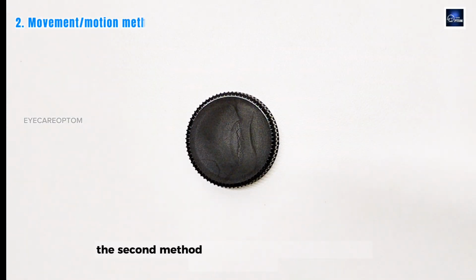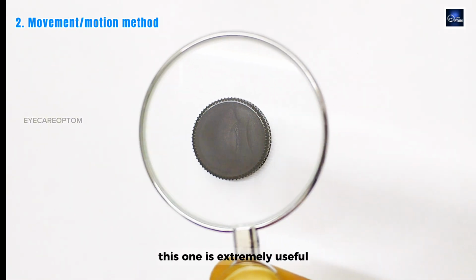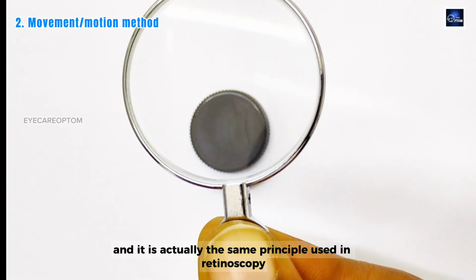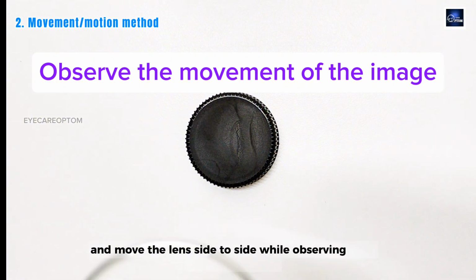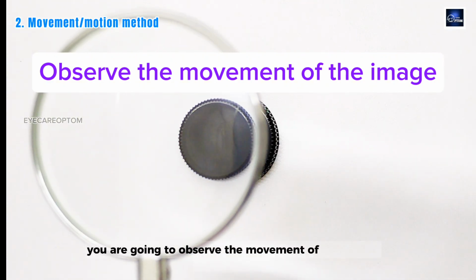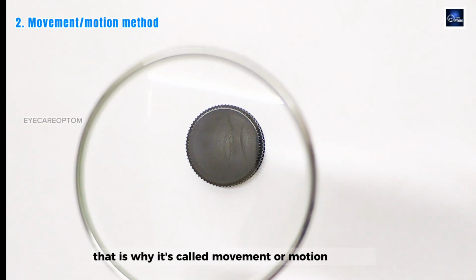The second method, the movement method or the motion method. This one is extremely useful and it is actually the same principle used in retinoscopy. For this, you need a stable target. I am using this one right here, and I move the lens side to side while observing how the image moves. You are going to observe the movement of the image and identify it. That is why it's called the movement or motion method.